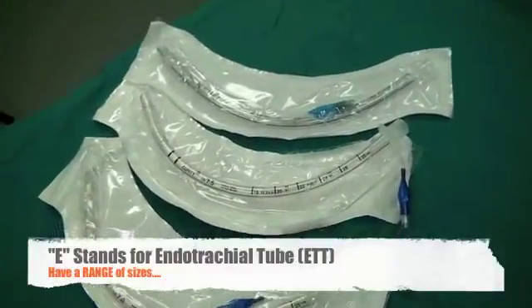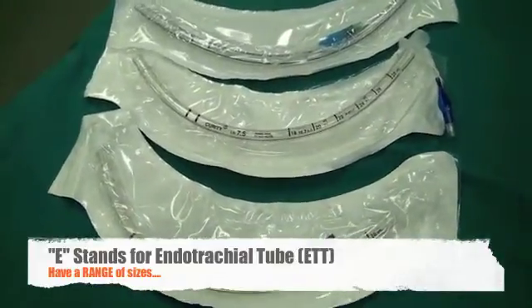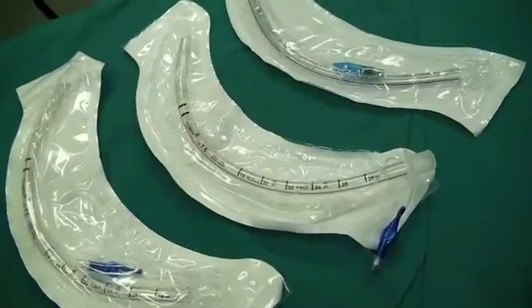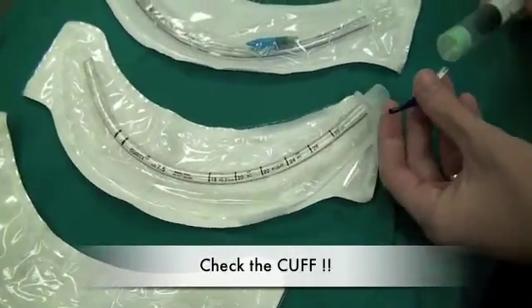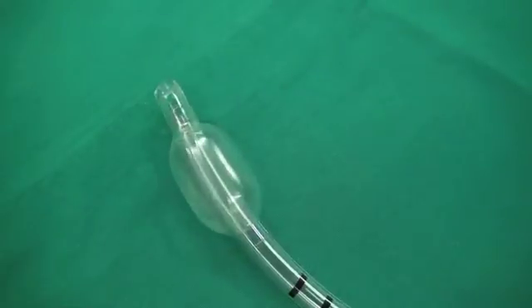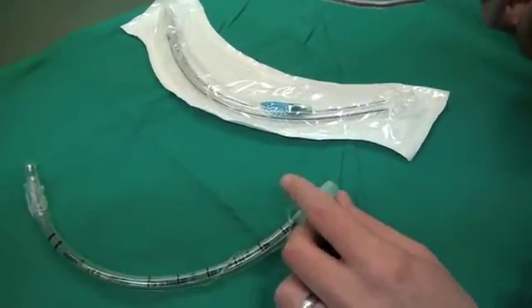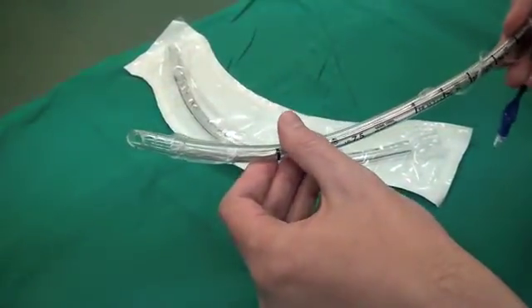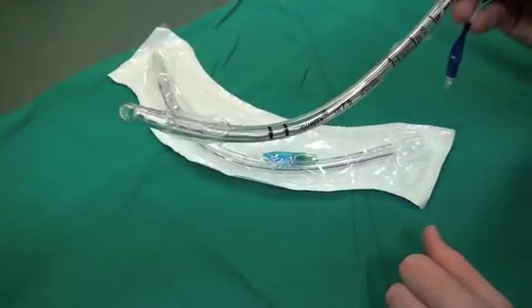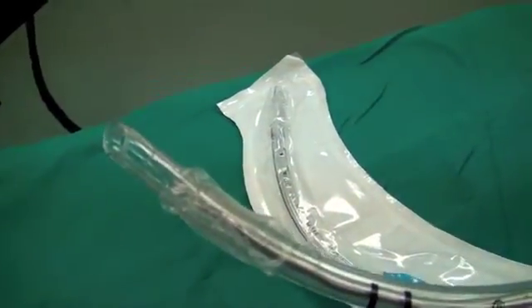E stands for endotracheal tube. You need to have a range of sizes that is appropriate for the size of your patient. Having chosen an appropriately sized endotracheal tube, one then needs to check the integrity of the cuff. One can then load the stylet into the endotracheal tube. First one applies some KY Jelly to the tip of the stylet, which now allows for shaping of the tube. It's important to ensure that the stylet or introducer does not stick out the end of the endotracheal tube.